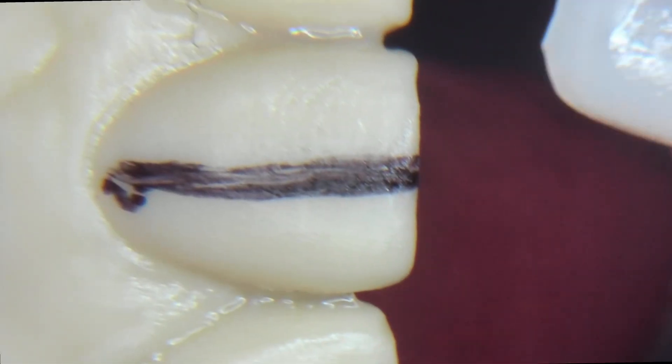Almost felt spathic-like at this point. Check this out — so cool guys. I hope this helps. Can't wait to see your veneers.